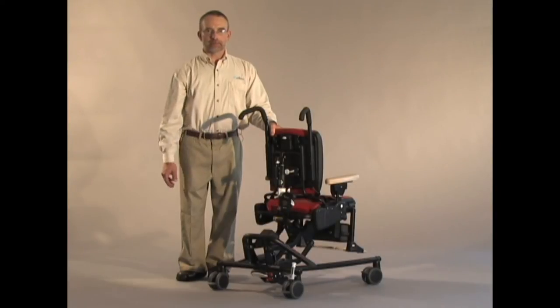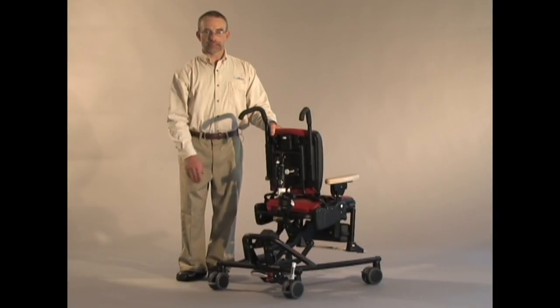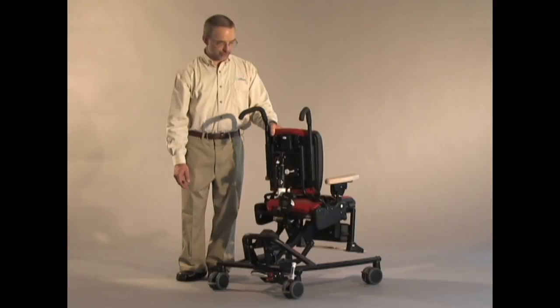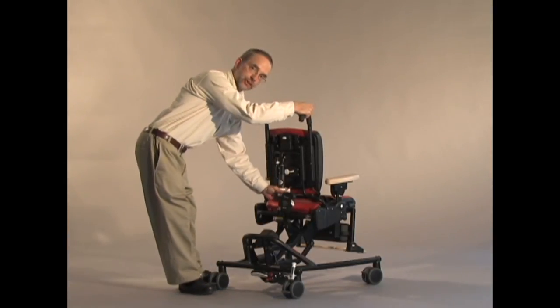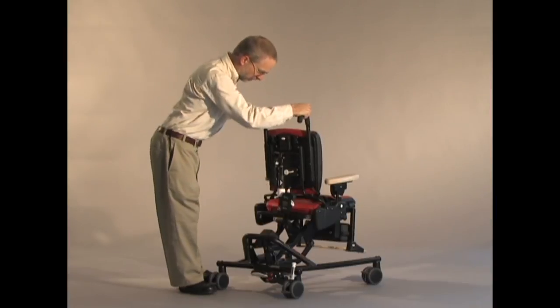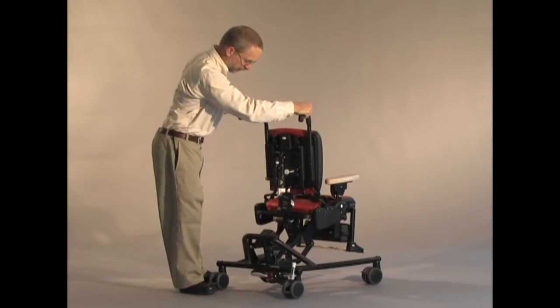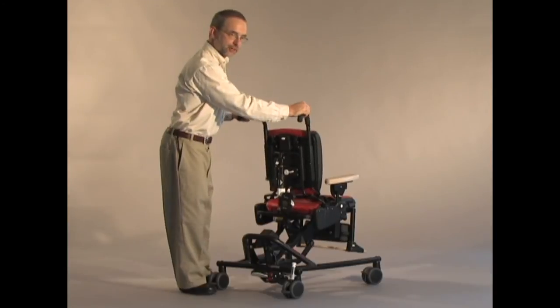We offer the same dynamic spring feature behind the backrest on the high-low base option chair. Again, that is this white handle on the backrest cylinder. I can turn this to lock it or turn it this way to unlock it to enable the ten degrees of bounce.